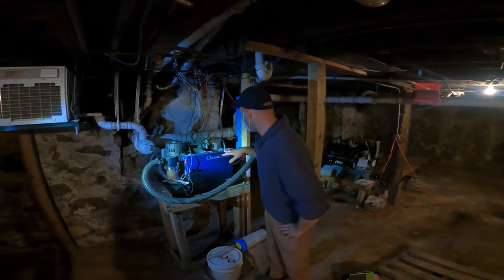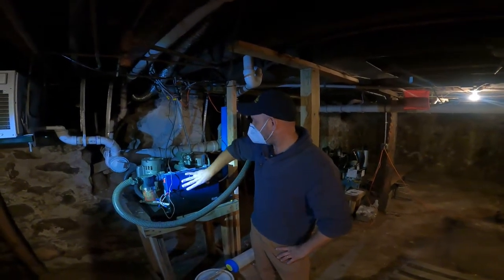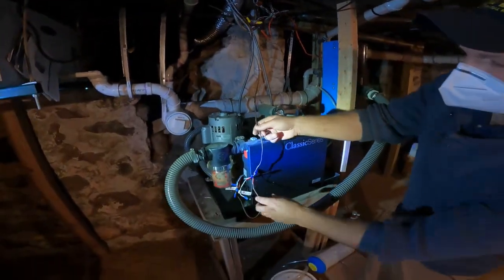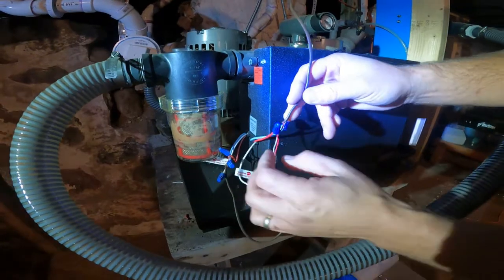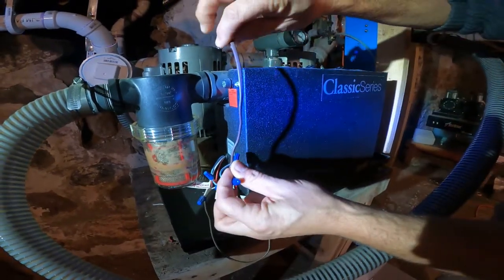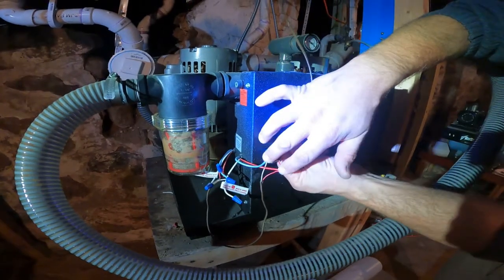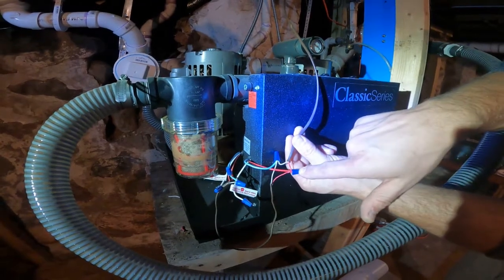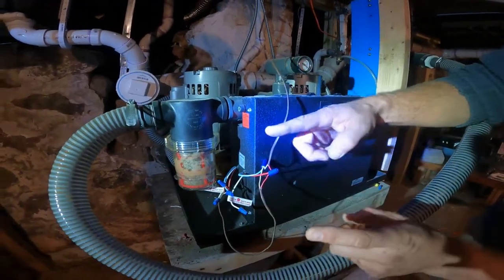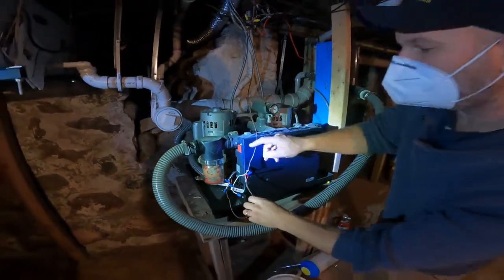What we have here is a dual wet ring pump system. These are Mid-Marks and they are 1.25 horsepower vacuum pumps. Presently the control is shared, however we have dual power coming in — one side for each pump. We also have activation here where we've got our low voltage. The blue and the red come out, and then they come here to low voltage wiring that goes up to our switch. This is connected to the switch that was not working earlier, and these are actually in parallel. This is an interesting setup because each one of these systems has a 24 volt going through it — so we actually have two 24 volts laid on top of one another.